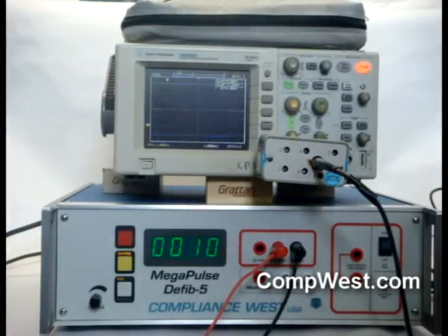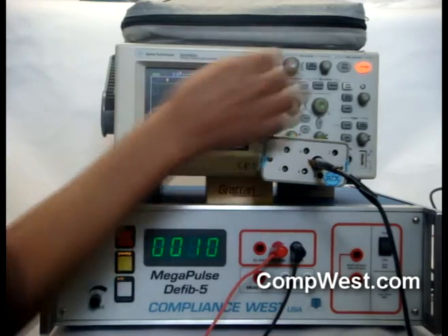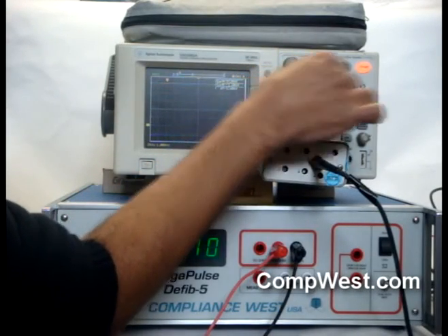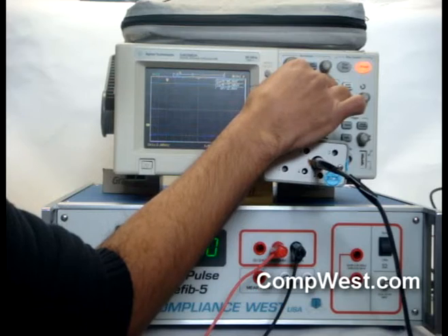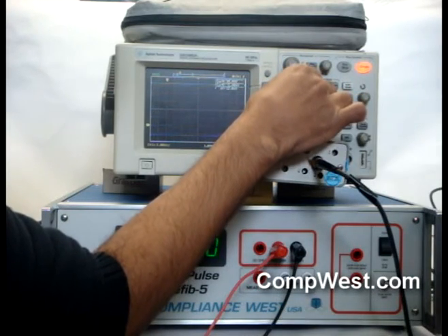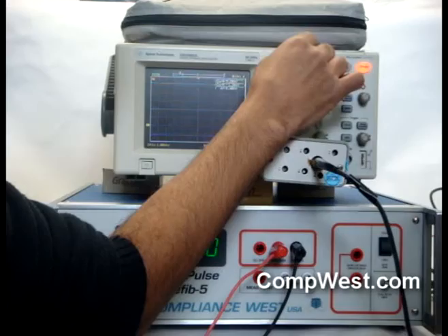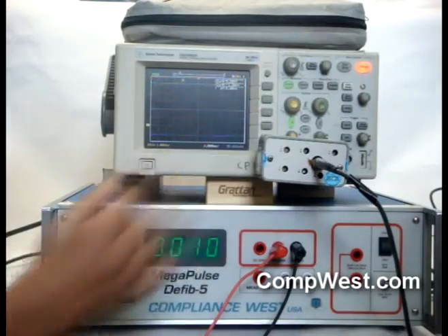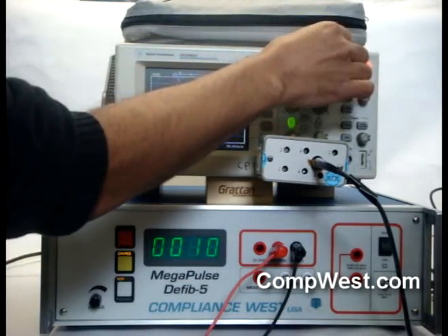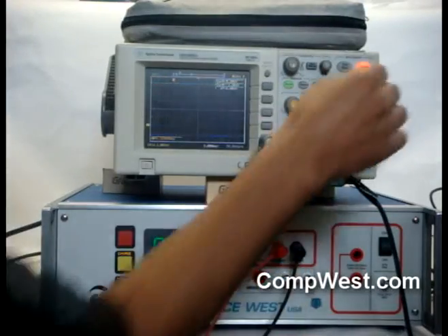Next, adjust the oscilloscope for 1 kV per division and 2 ms per division. Next, adjust the trigger level of the scope to approximately 1 kV.